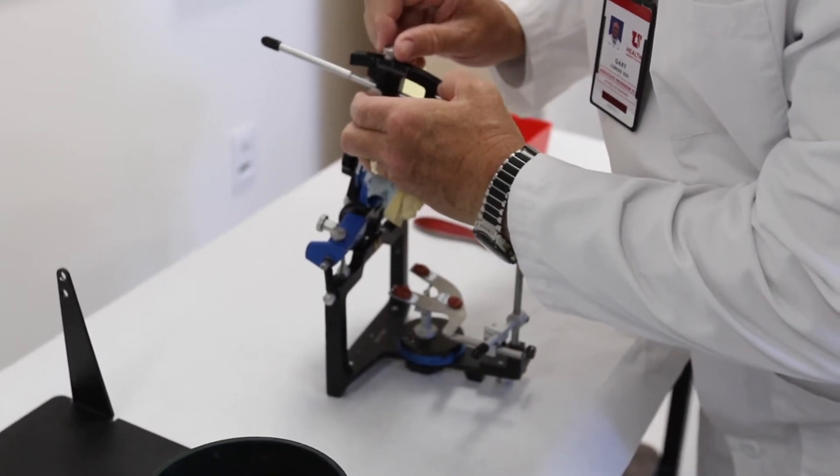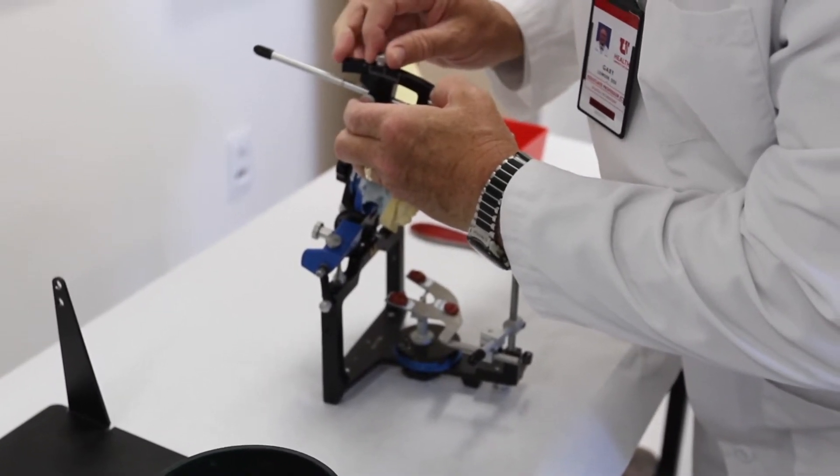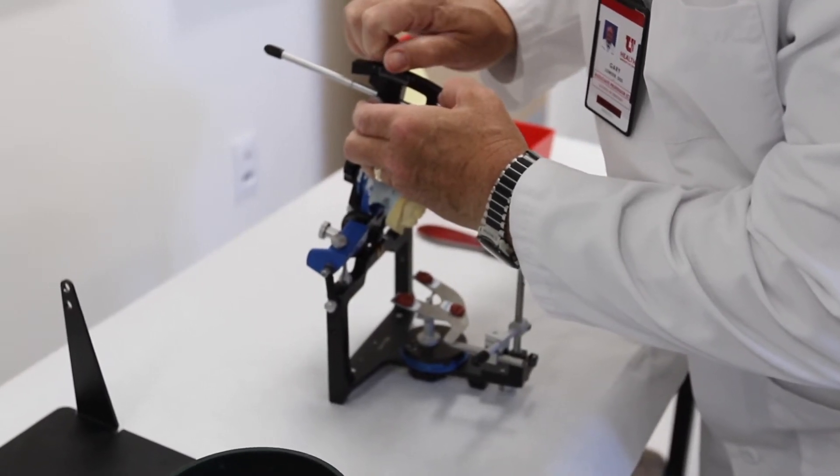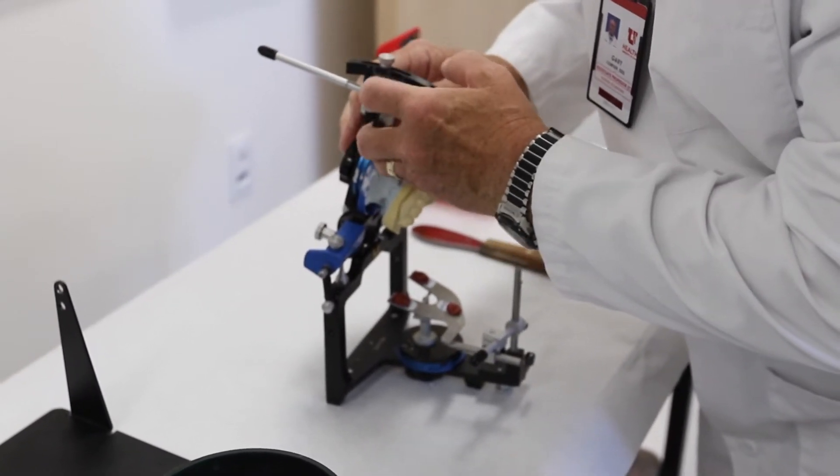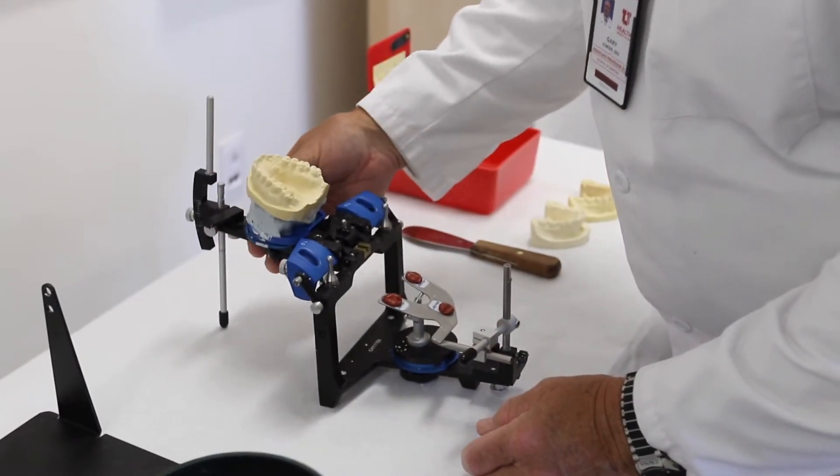Plus two, this doesn't represent two millimeters, it's just two large lines on that index. Rotate it over.